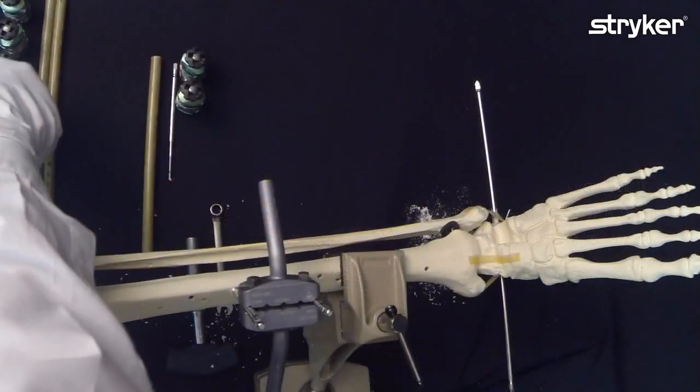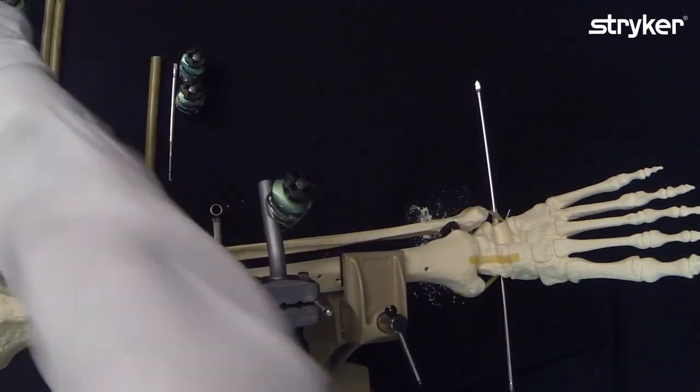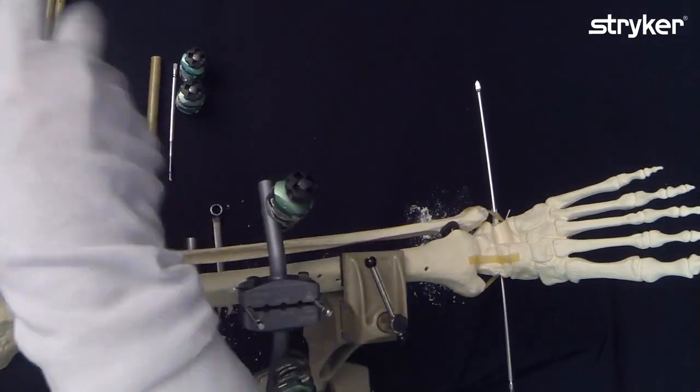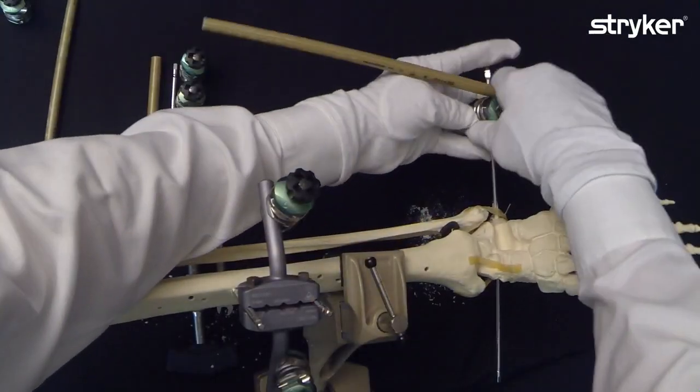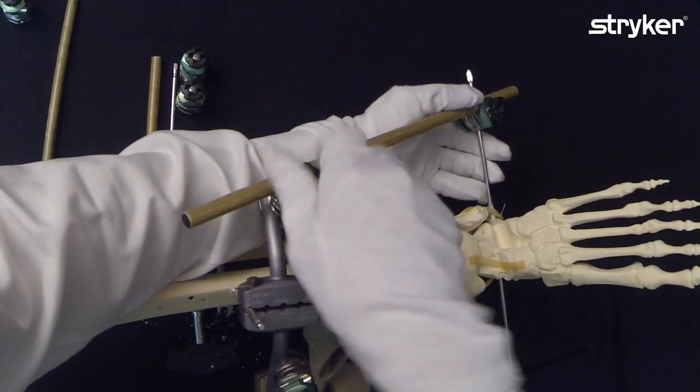Now we mount the first bars. Take the delta green to green. Quick tighten. That's where the thumb wheels are so handy.